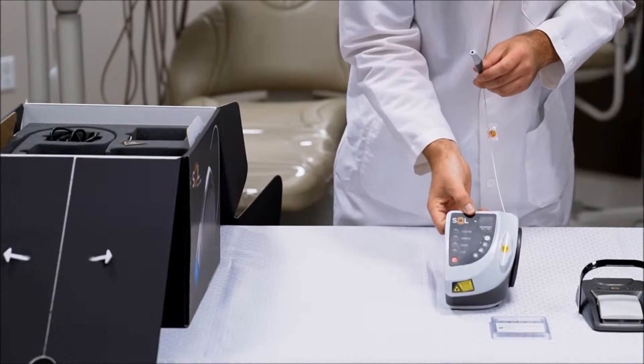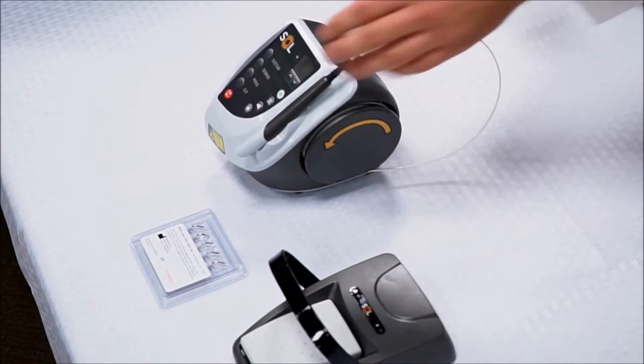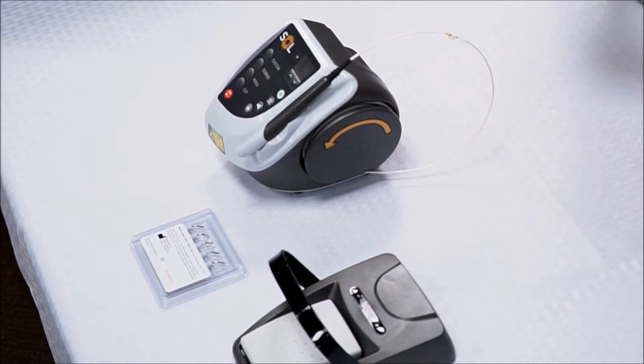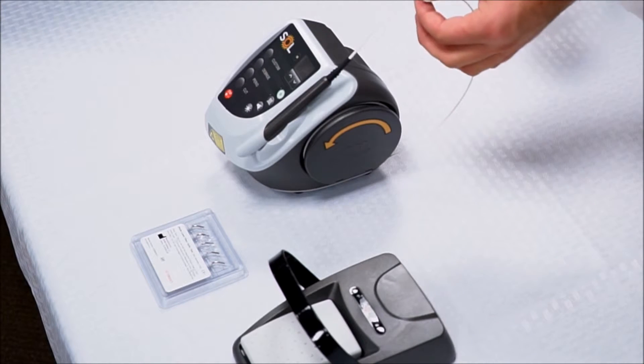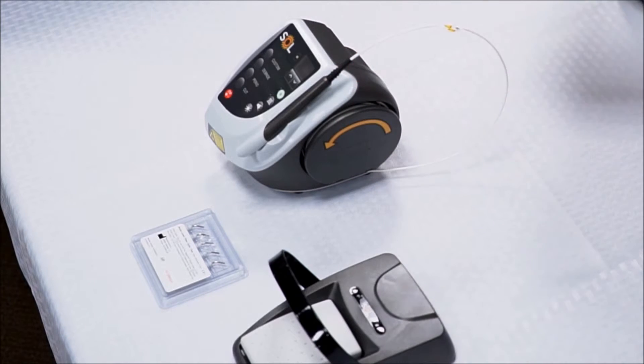And then here you have your laser unit and the handpiece. The handpiece is magnetic, so please make sure you always store it this way. This fiber optic cable is made of glass and can break, so be very careful with this component.